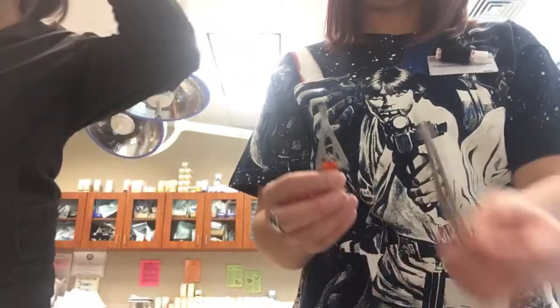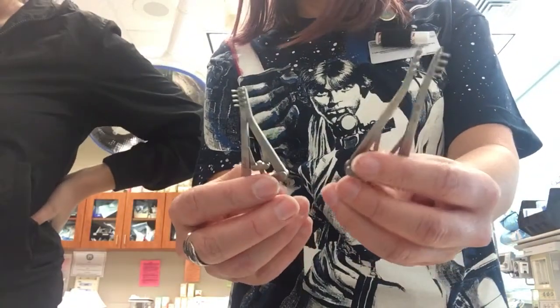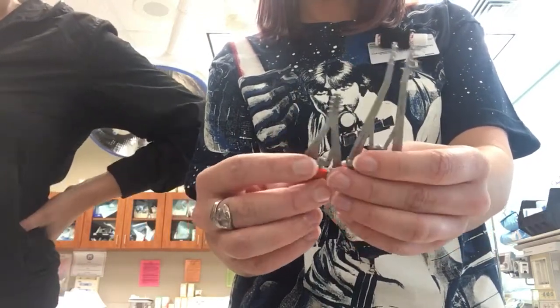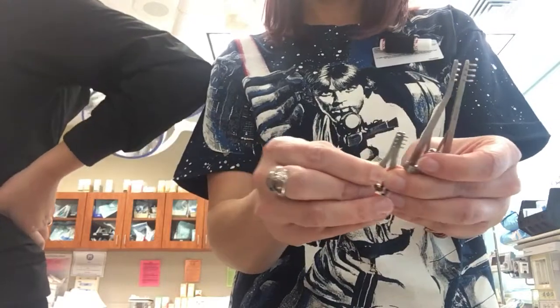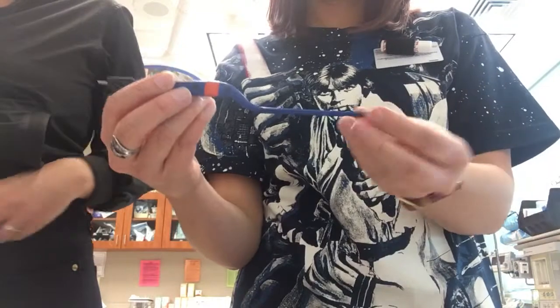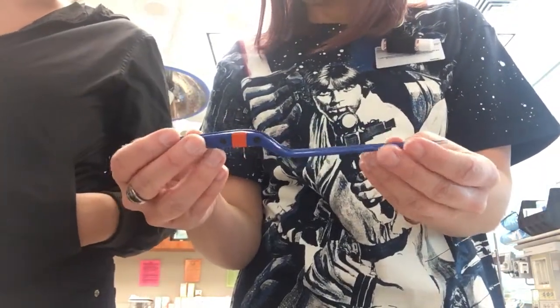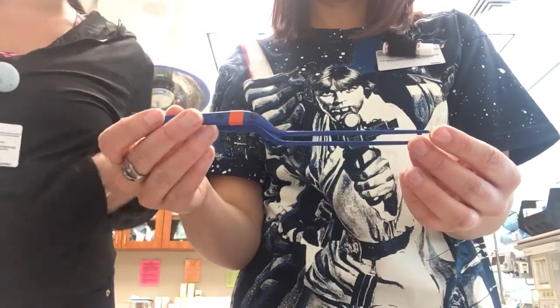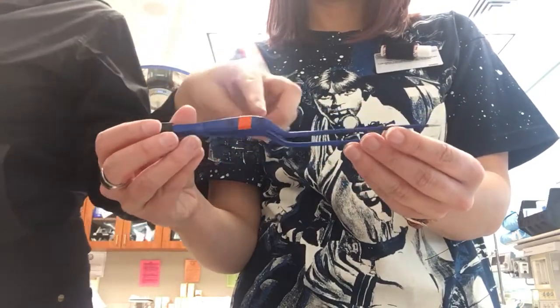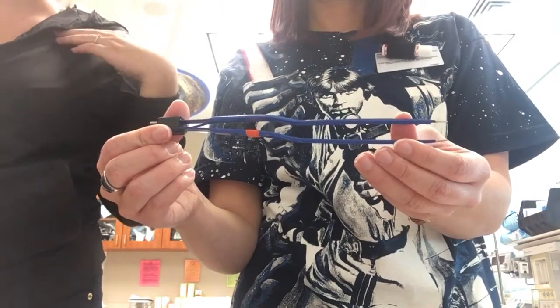So these are ALMs, spelled A-L-M. We don't need to know the different sizes. This is an ALM — it's a retractor. And then here we have a bipolar bayonet forcep. Remember: blue is always bipolar. No matter what instrument it is, if it's blue, it's bipolar. That's just what blue always means.